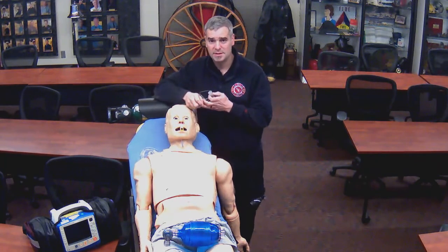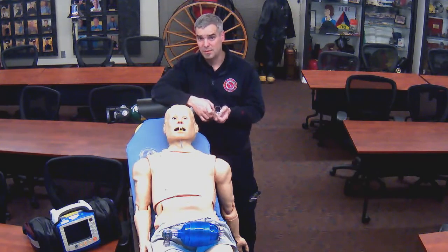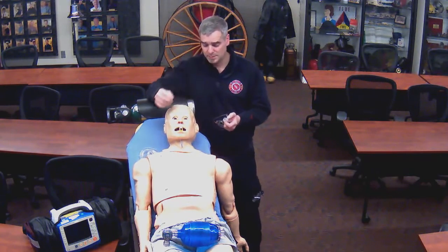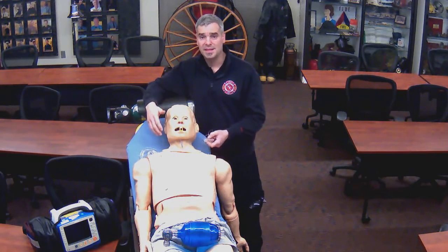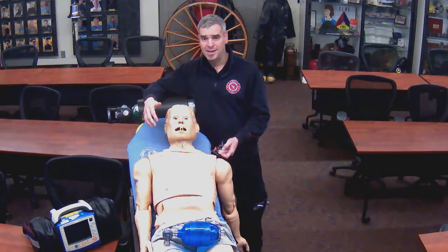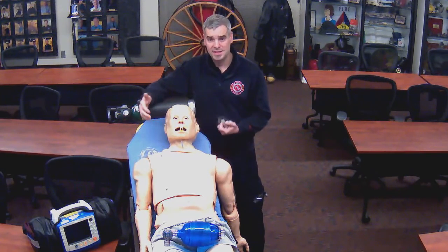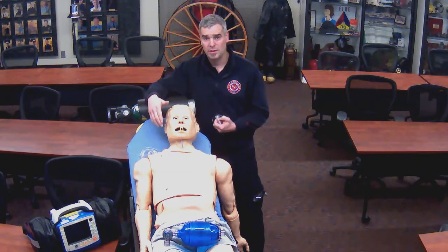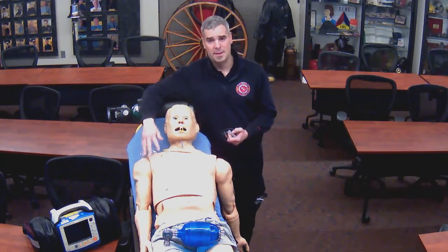For cardiac arrest, this can be critical because it can tell us if we're doing good compressions or if the patient is even viable. We would expect to see, for a patient that is in cardiac arrest that is getting quality compressions, an ETCO2 of 10 to 15. If we see 10 to 15 on our monitor, we know that there's potential for that patient to be revived, that there's still a metabolic process happening in the body.